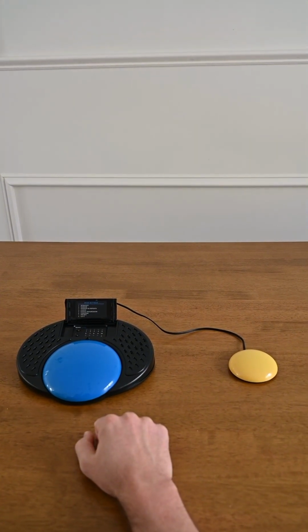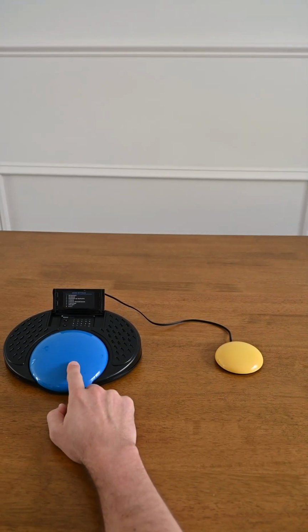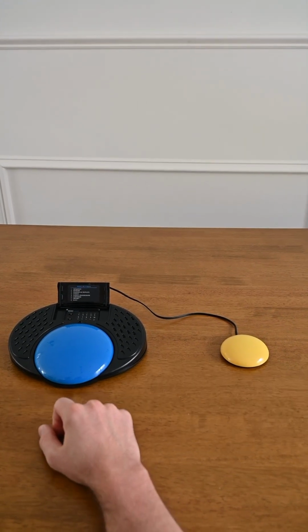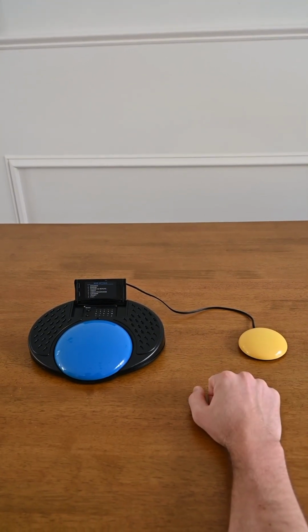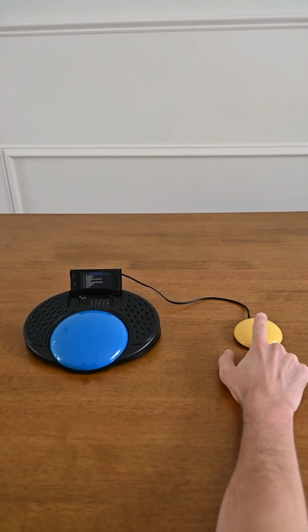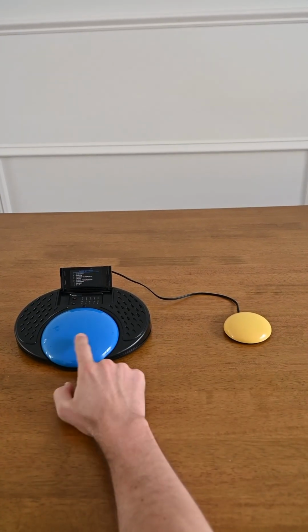Hello, my name is George. Now if I press my switch again, nothing happens because it's not my turn to speak, it's the other person's turn. Hello, my name is Madison. If Madison pressed her switch again, nothing happens until George speaks again.